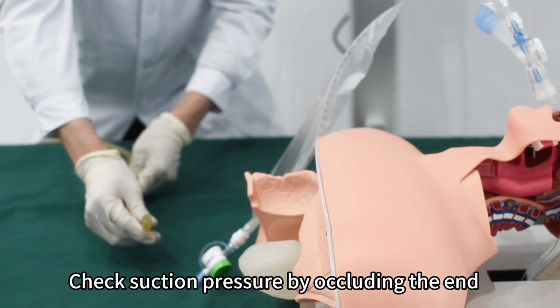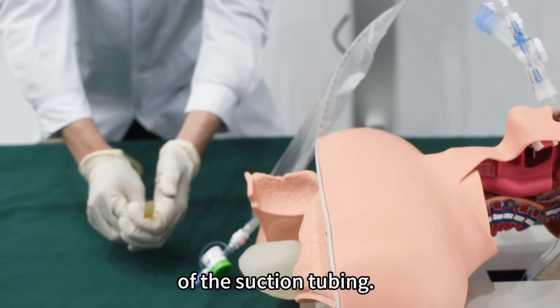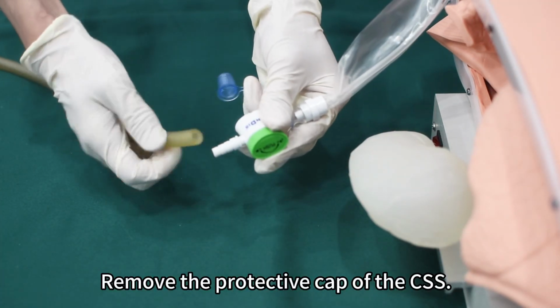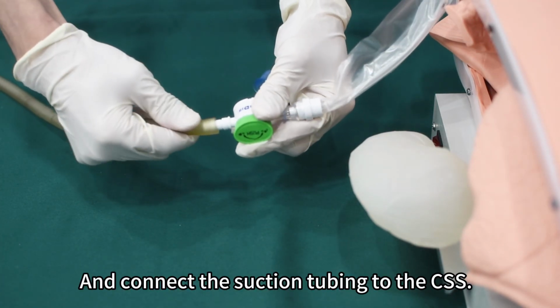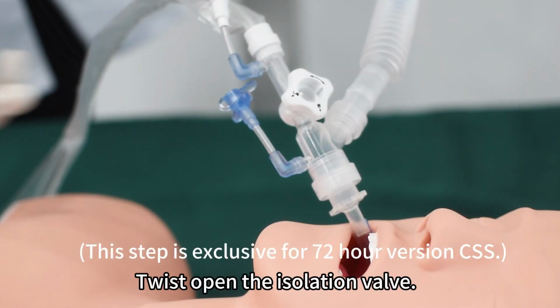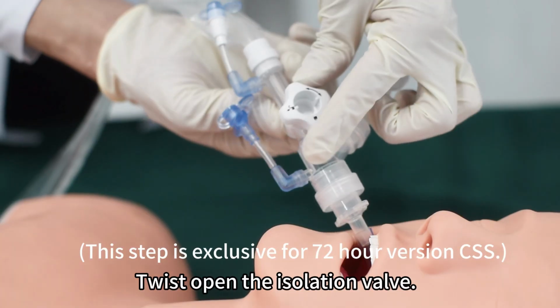Check suction pressure by occluding the end of the suction tubing. Remove the protective cap of the CSS and connect the suction tubing to the CSS. Twist open the isolation valve.